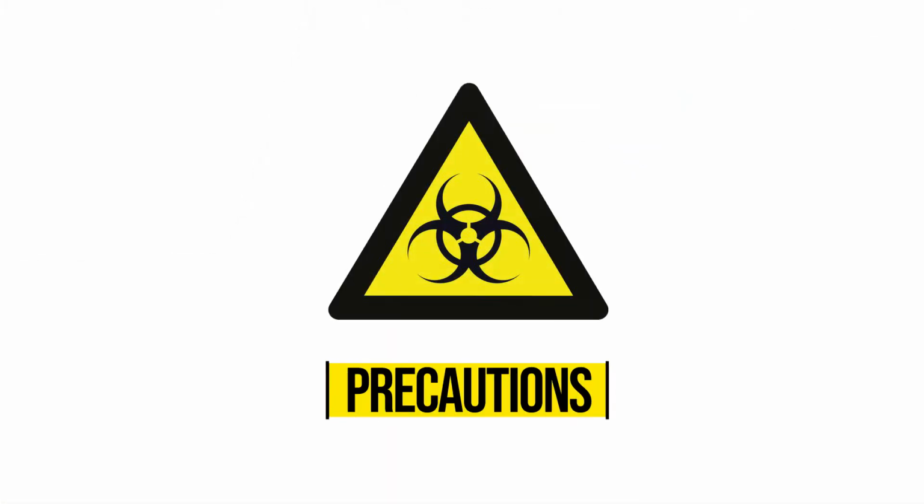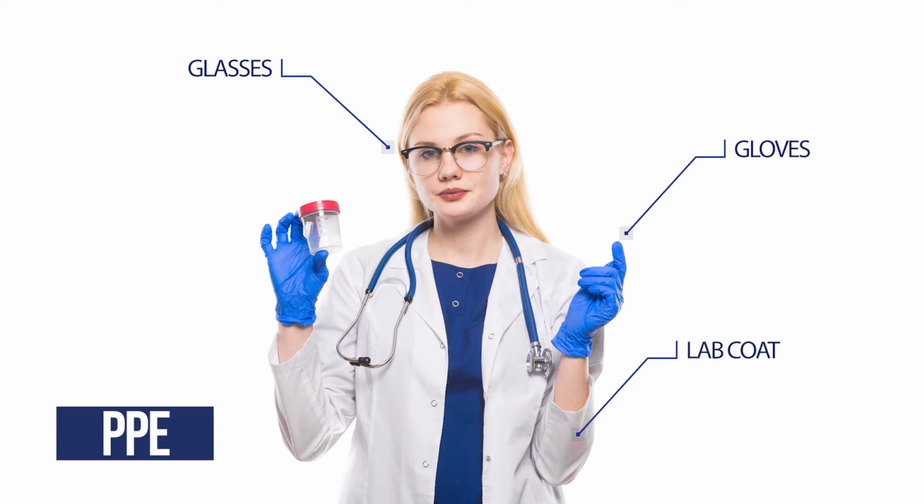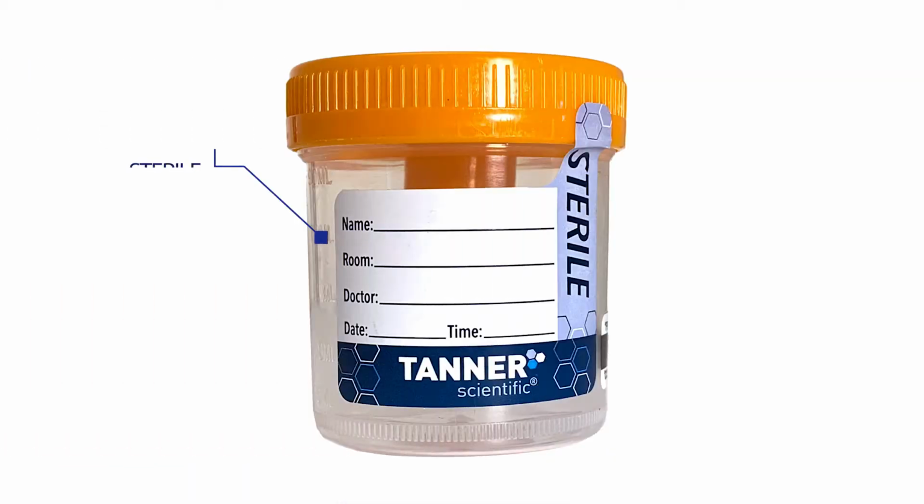When handling urine specimens, you must follow standard guidelines and universal precautions for working with biohazardous materials. Use personal protective equipment, including gloves, eye protection, and a coat or gown to prevent exposure to blood-borne pathogens or other potentially infectious materials. When collecting urine, provide the patient with a sterile, sealed urine collection cup labeled with their name and date of birth.